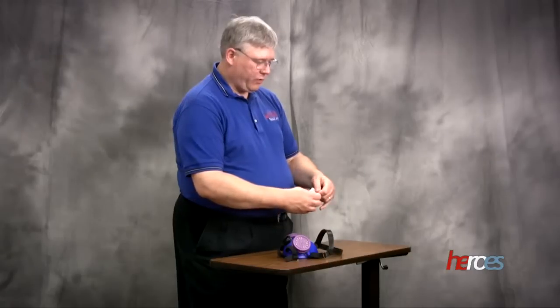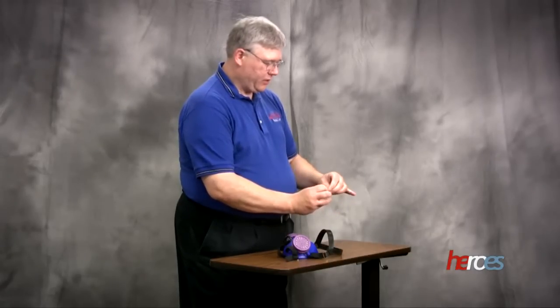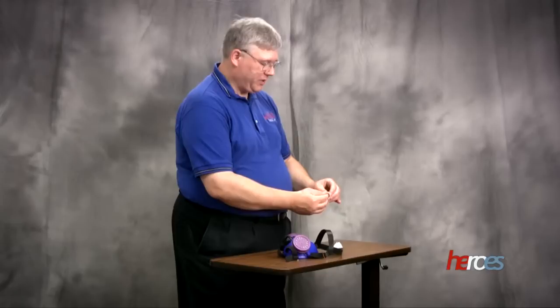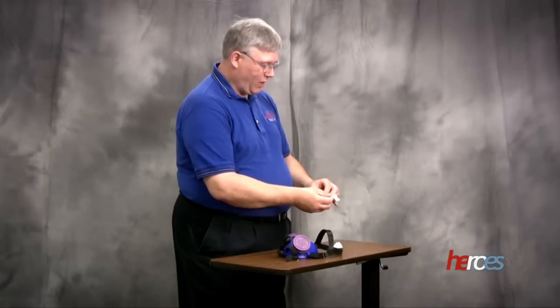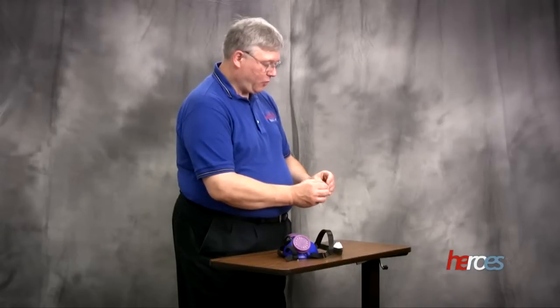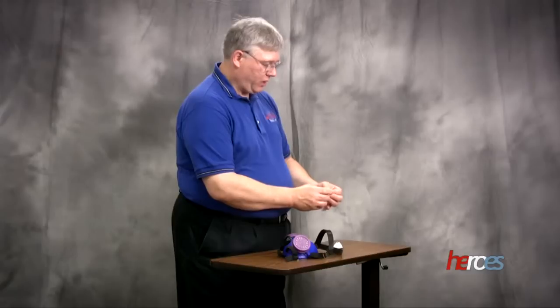Then you take the sanitizing wipes, and we recommend those that contain alcohol and they should be made for equipment sanitation. You want to make sure the wipe is moist as you unfold it. If it's not, that means it's not appropriate for use.